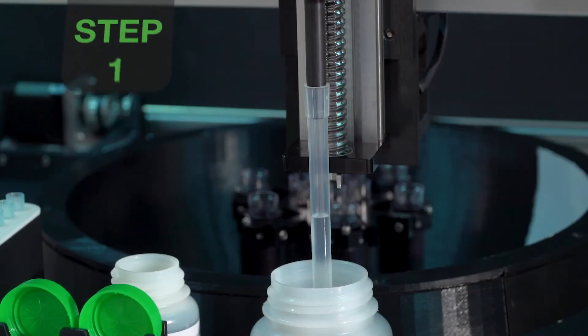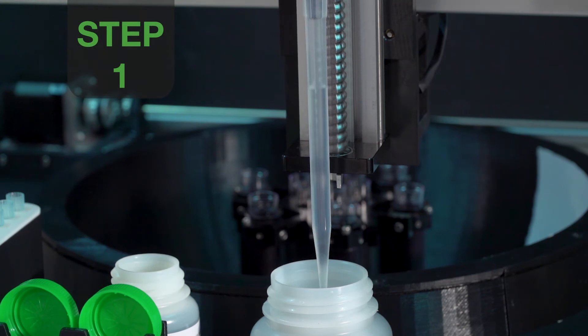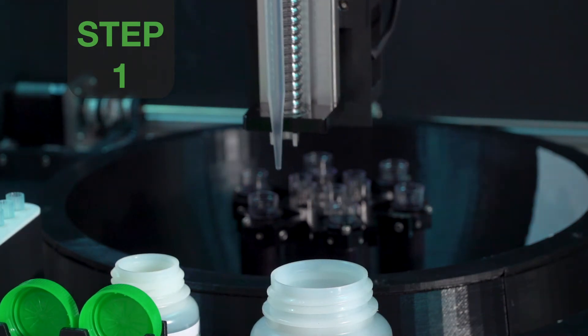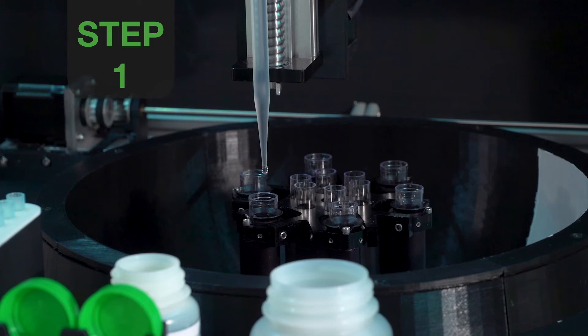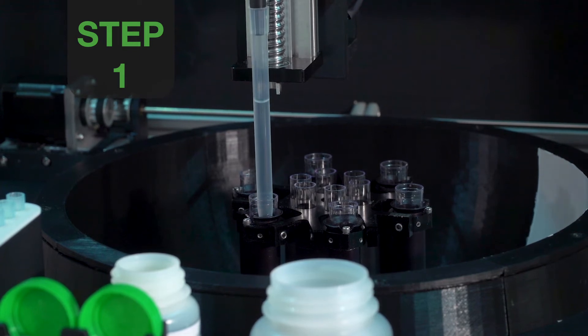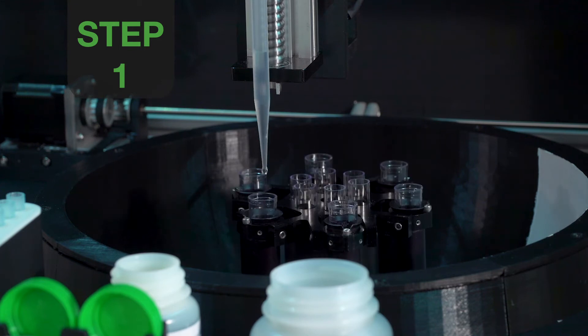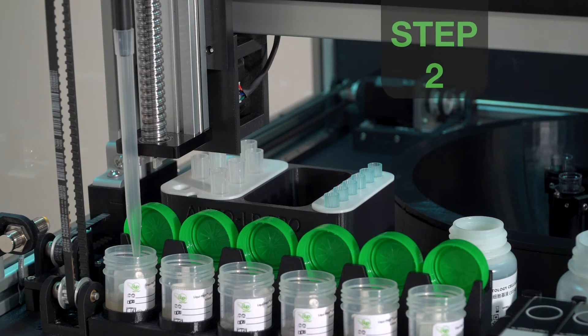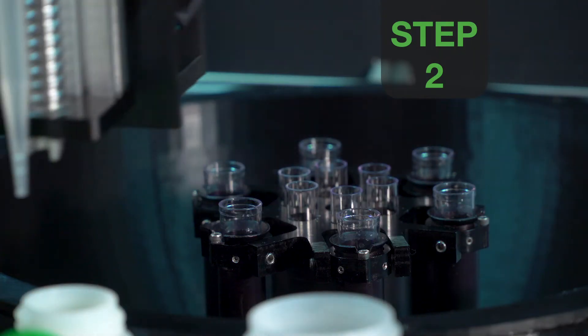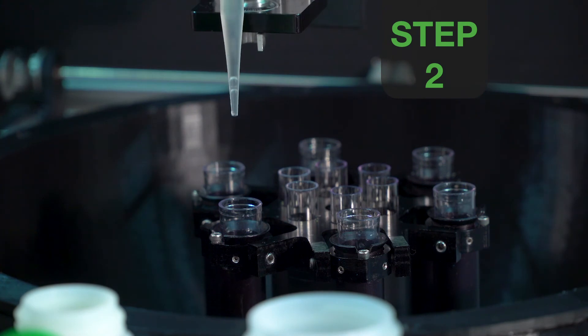The AutoLP Pro pipettes approximately 2 milliliters of LIQUIPREP cleaning solution into each 15 milliliter centrifuge tube. The unit then mixes each specimen to produce a homogeneous suspension. The unit then takes an aliquot of the specimen and delivers the aliquot into the centrifuge tube.